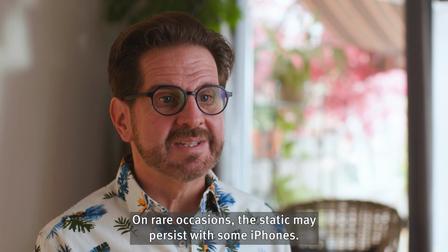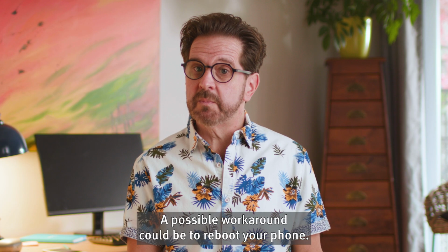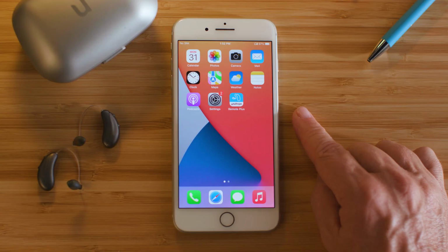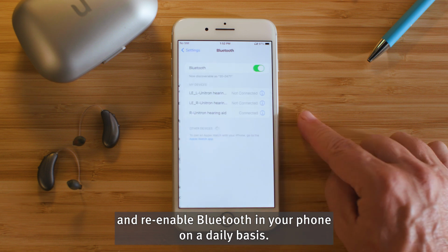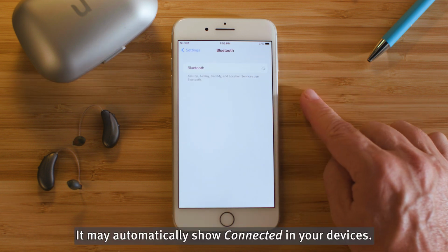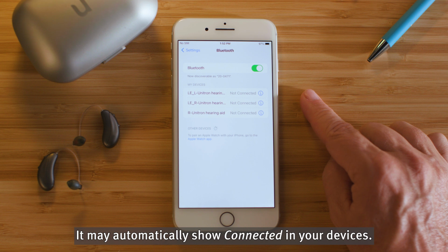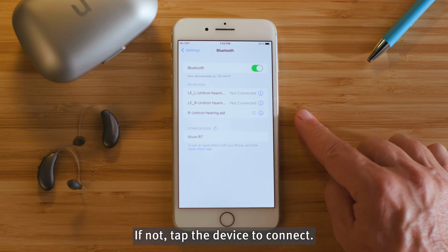On rare occasions, the static may persist with some iPhones. A possible workaround could be to reboot your phone. Another option is to just disable and re-enable Bluetooth in your phone on a daily basis. It may automatically show connected in your devices. If not, tap the device to connect.